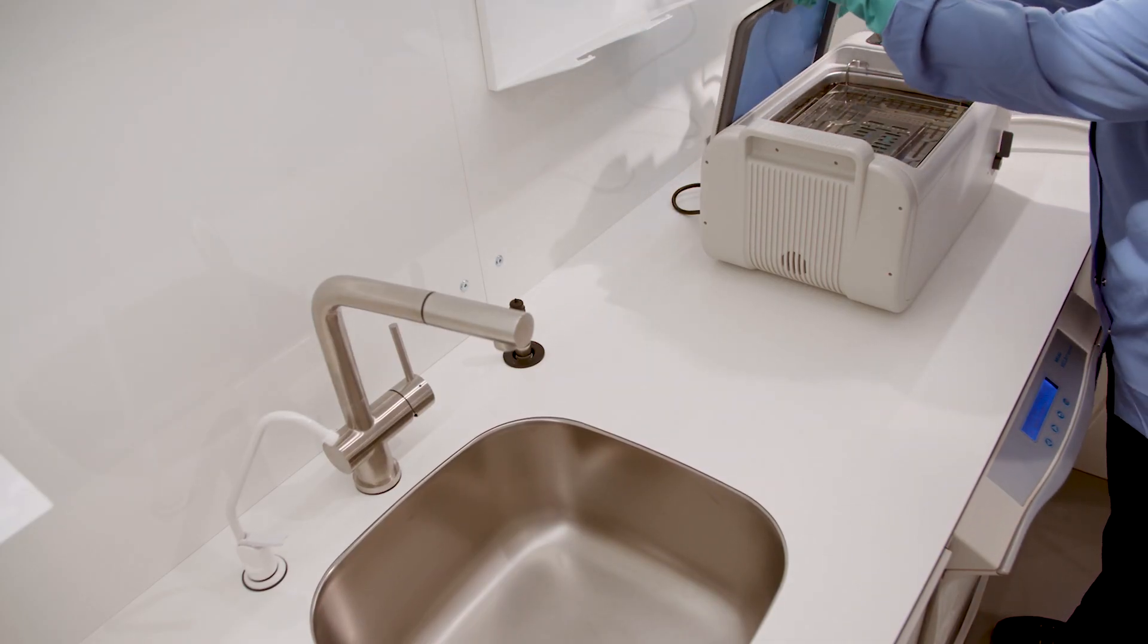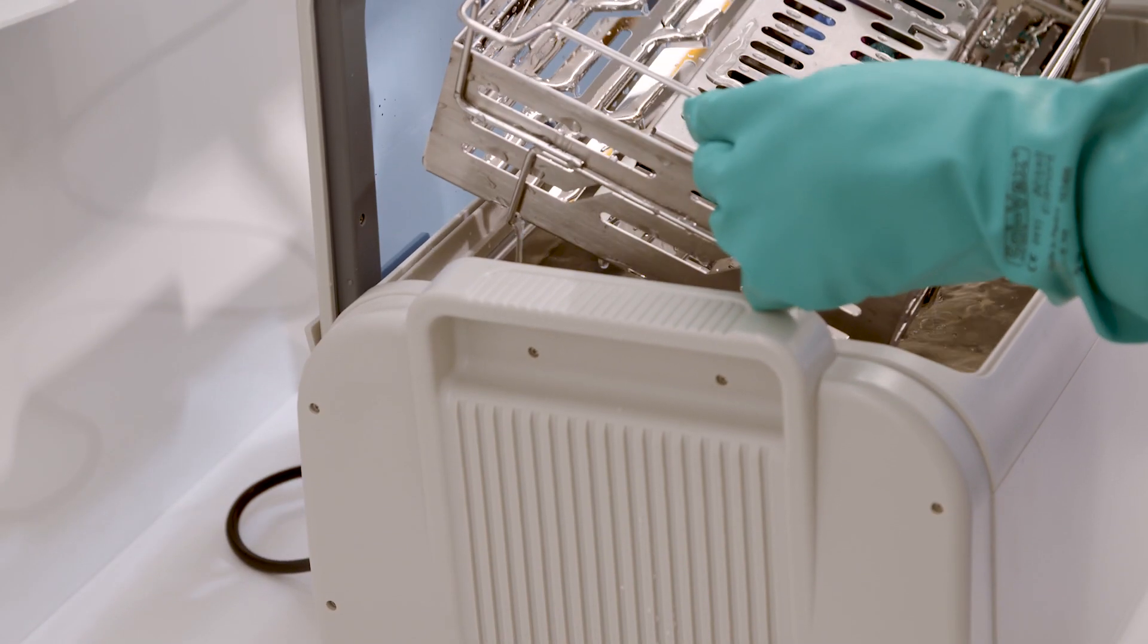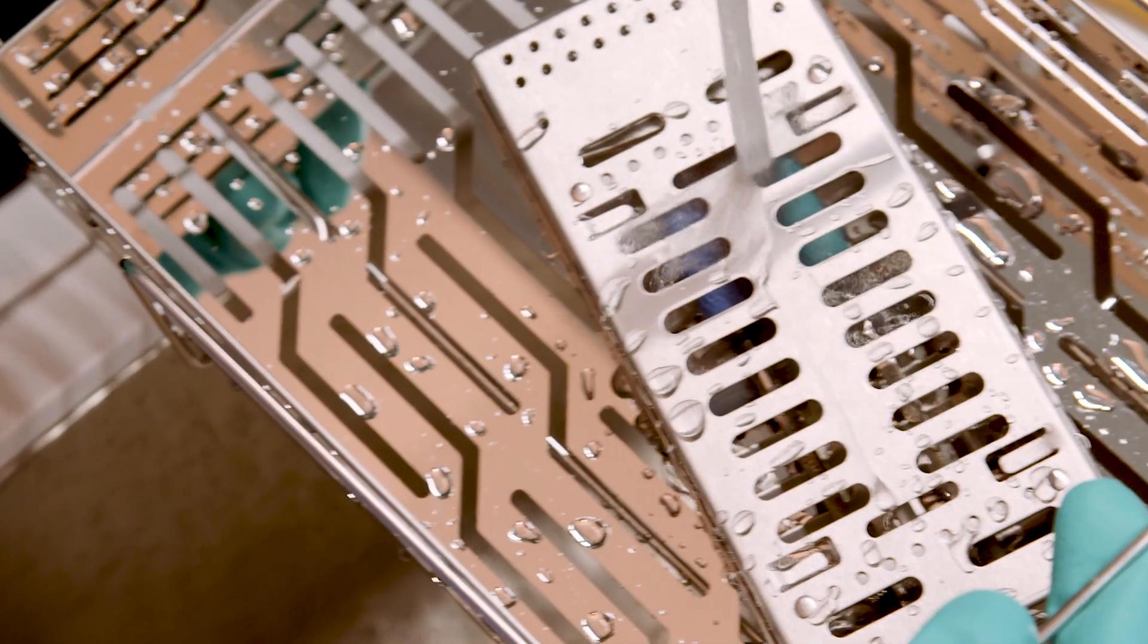Once the cycle is complete, lift the universal rack out of the cleaner, rinse the instruments and set aside to dry.